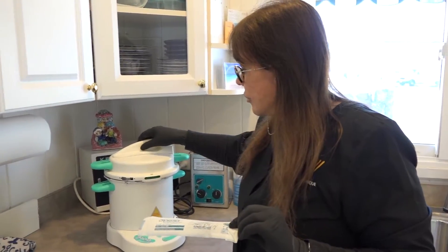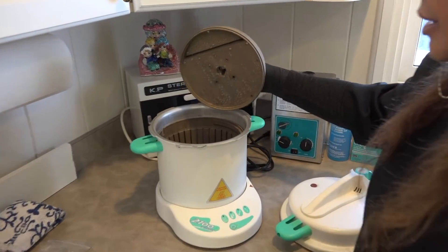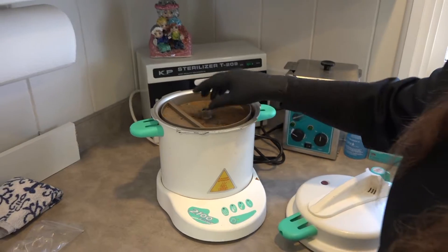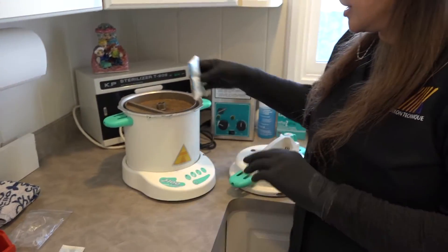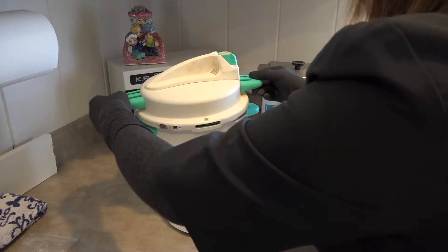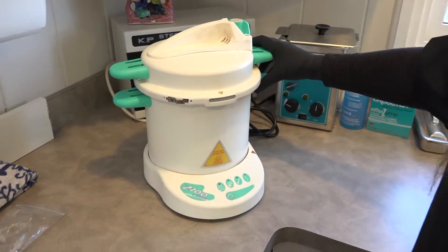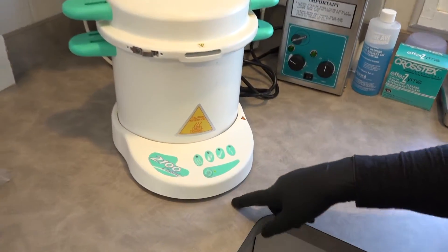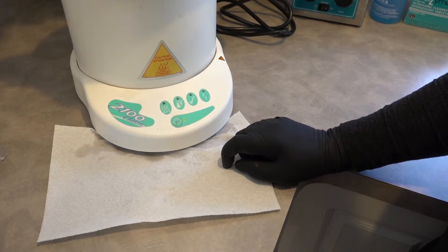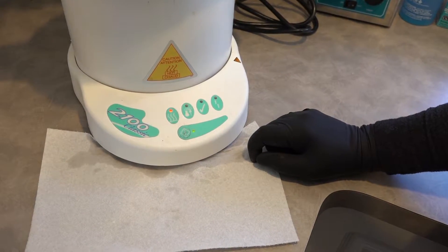I'm going to take off the lid to the autoclave and check inside — there is water. I'm going to put our pouch in here, put on the top of the autoclave, twist it shut, and press the button. It will start to build temperature and pressure.